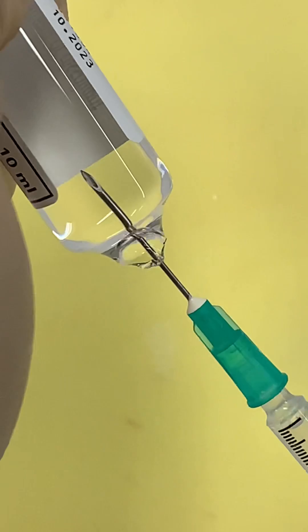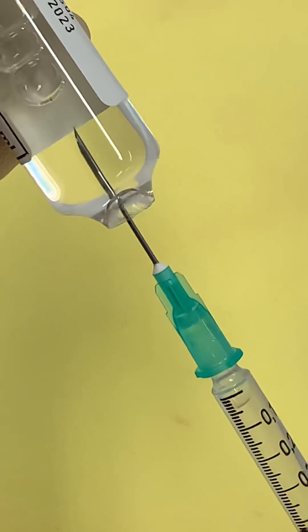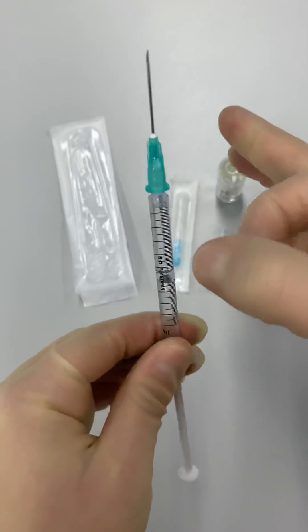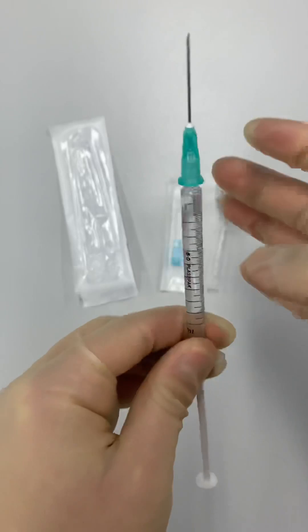Advance the tip of the needle into the ampoule and draw up a little more than the required amount. There was some air in the needle that will have gone into your syringe. So flick the syringe until it collects at the top.